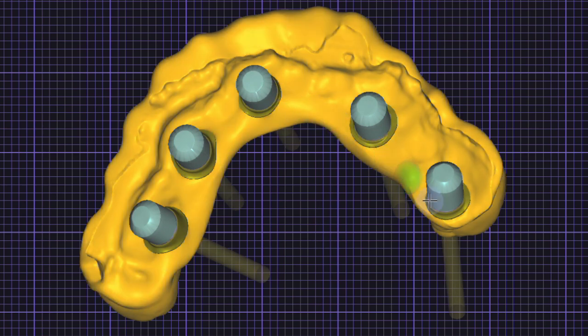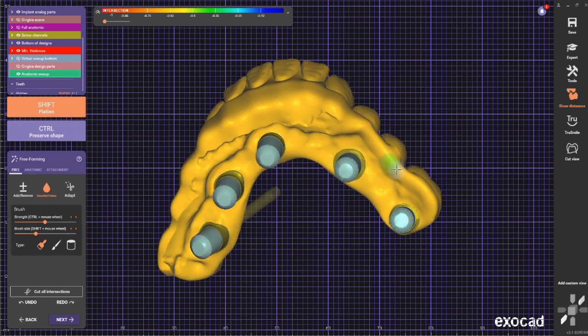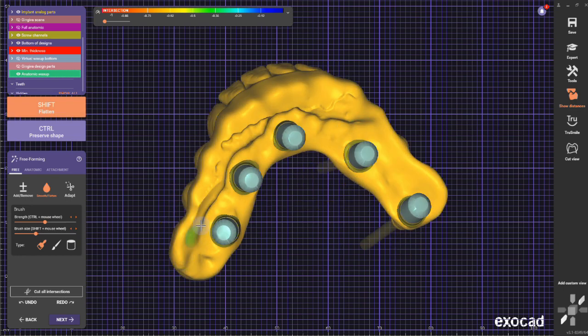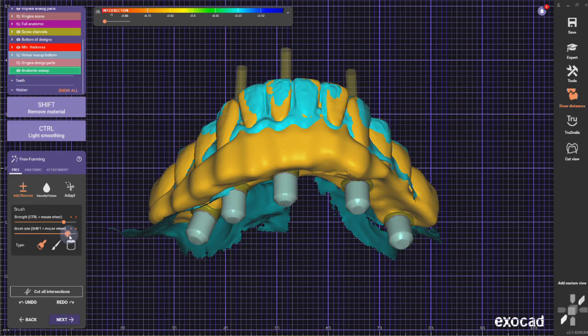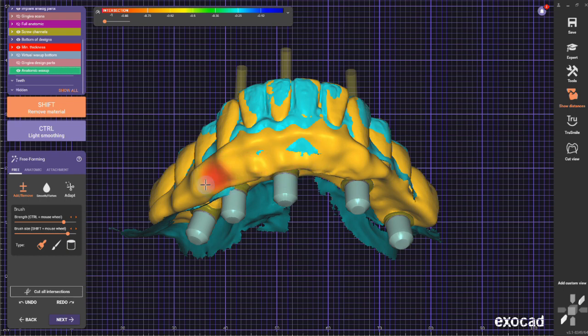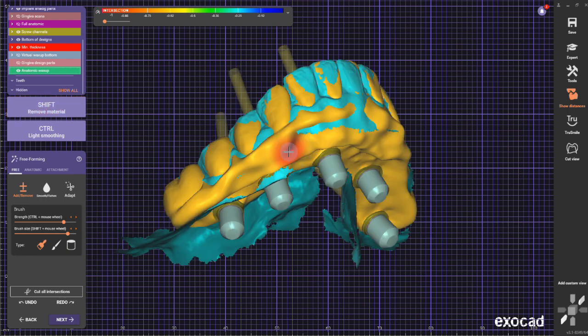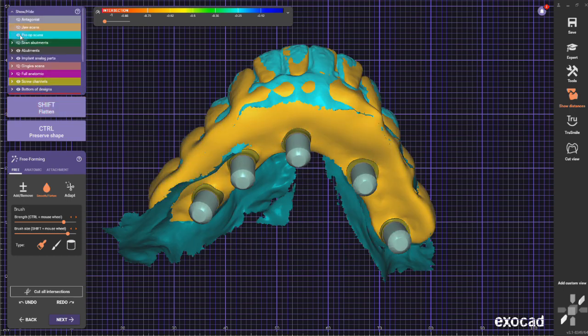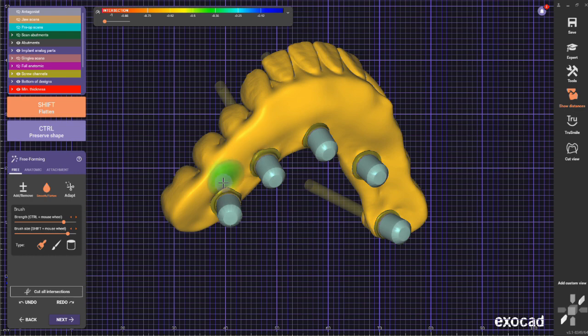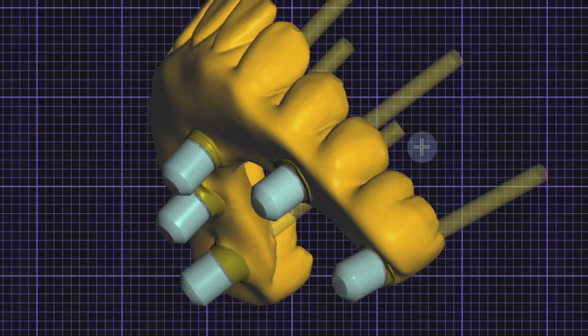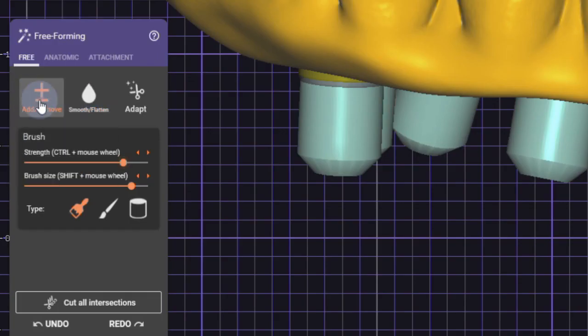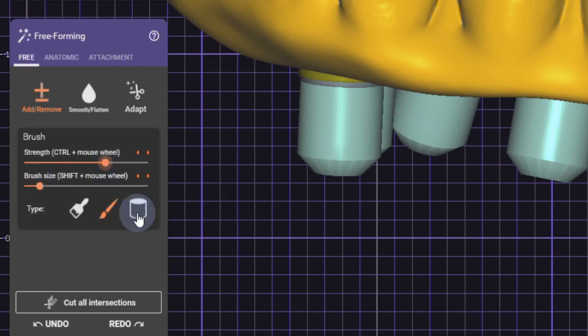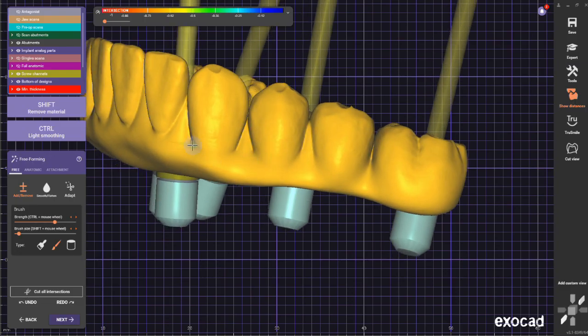The most important step is to create a convex surface on the underside of the prosthesis. I'm going to do this with the smoothing tool, and by holding the shift button on the keyboard, I can create a flat, strong smoothing area. Now I'm bringing in the pre-op. In this case, the design is a little bit further out than the pre-op, so holding down shift, I'm selecting the add and remove tool to remove it.